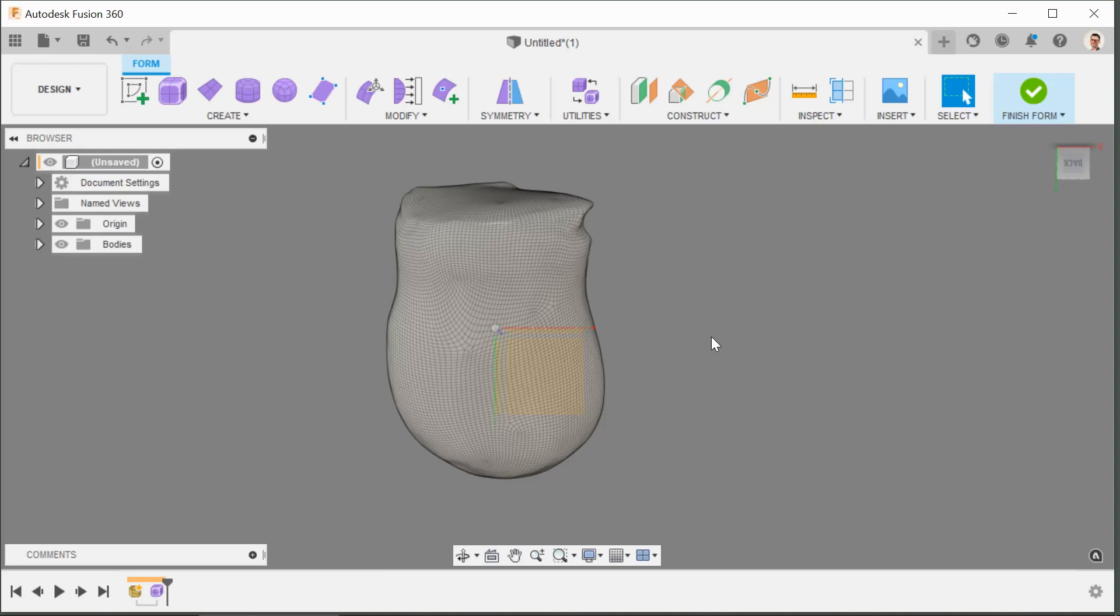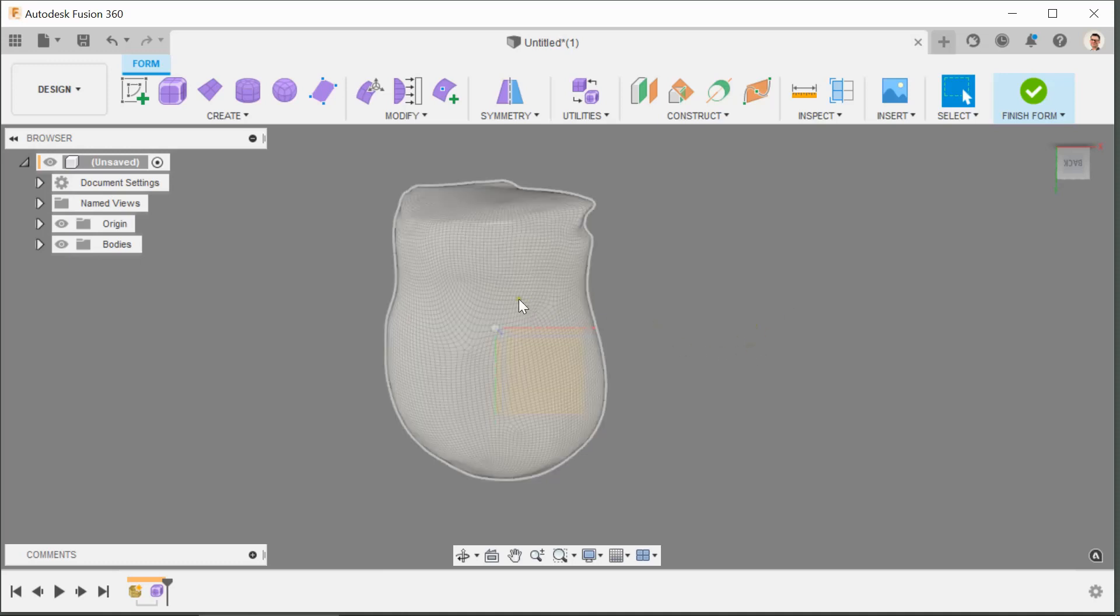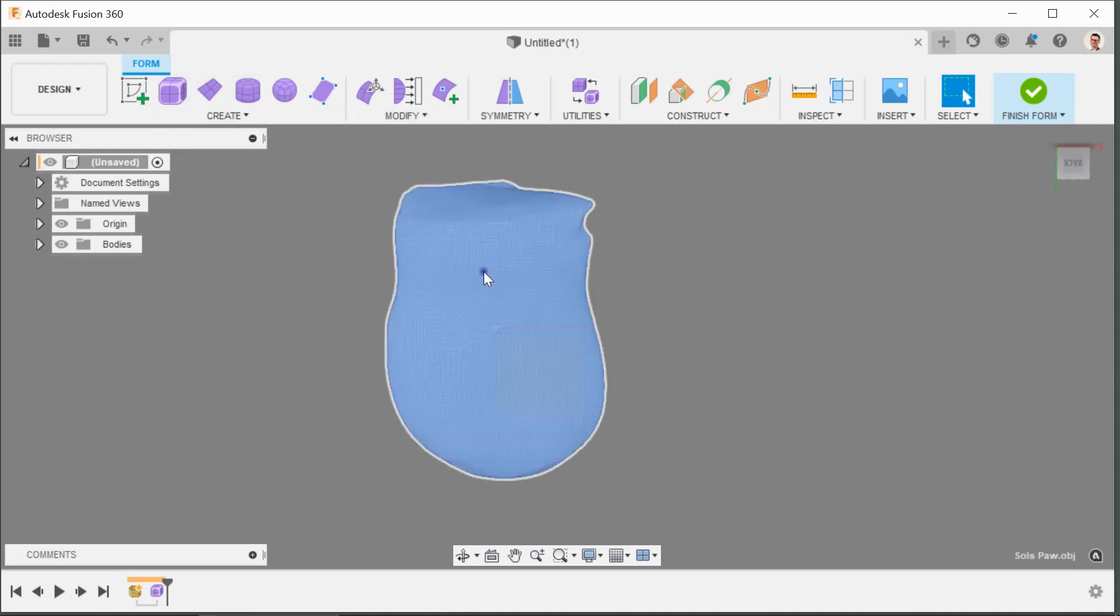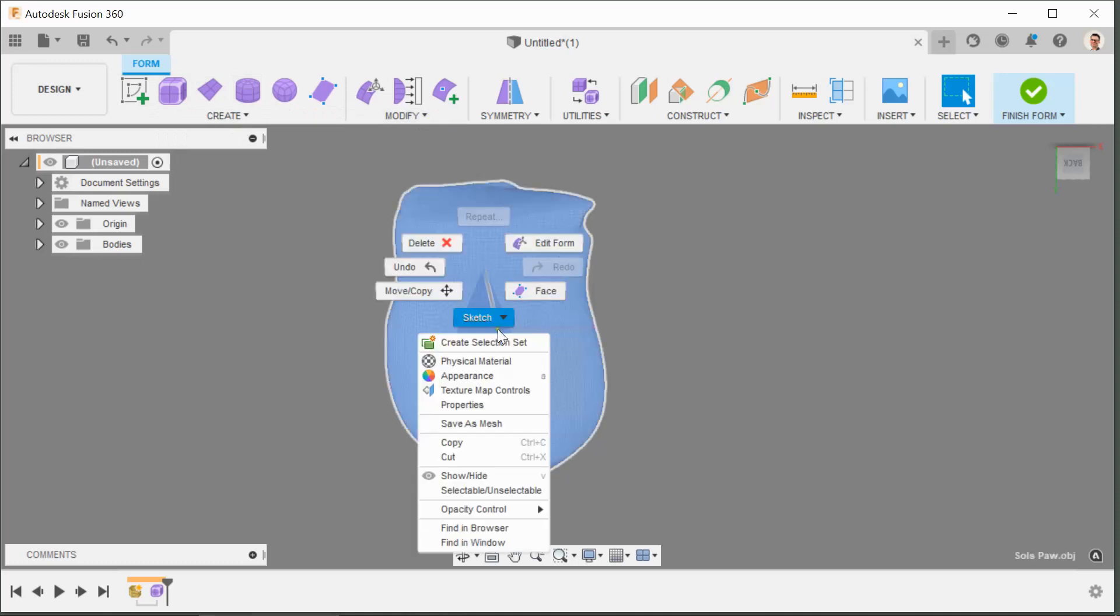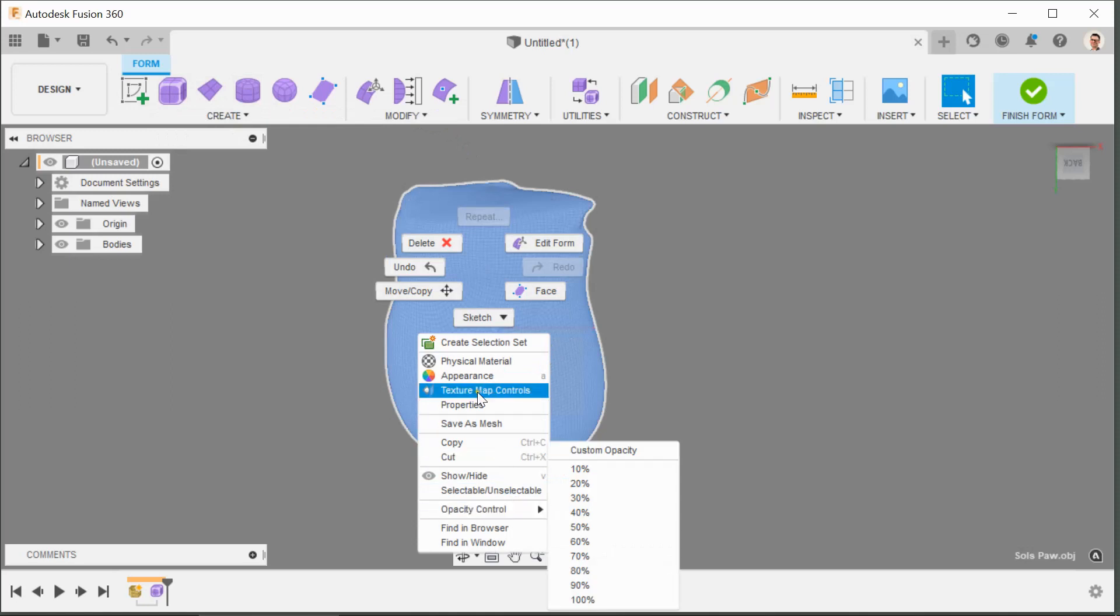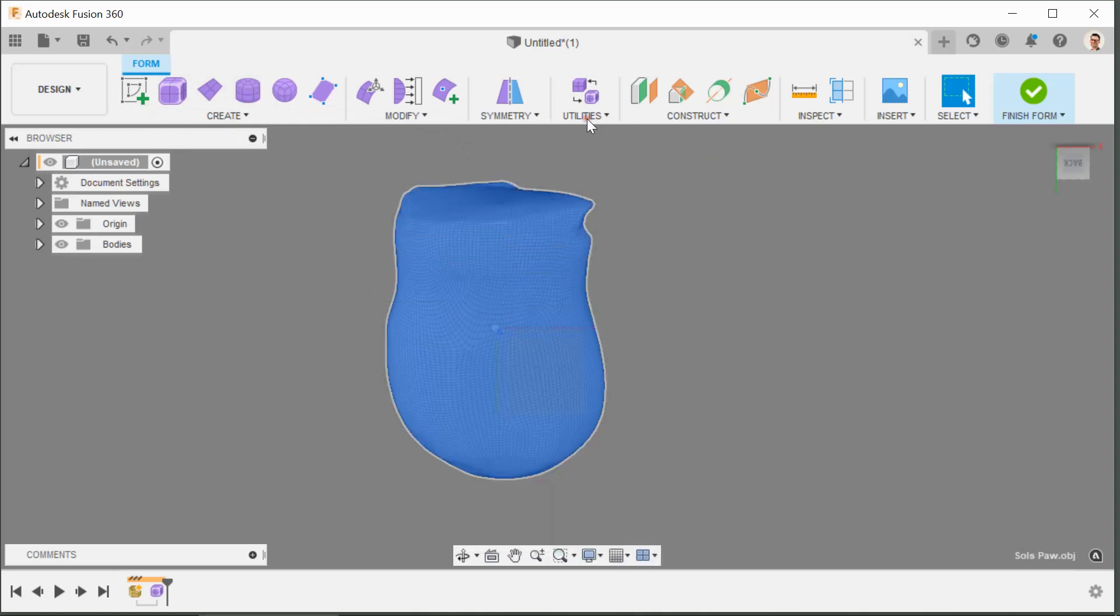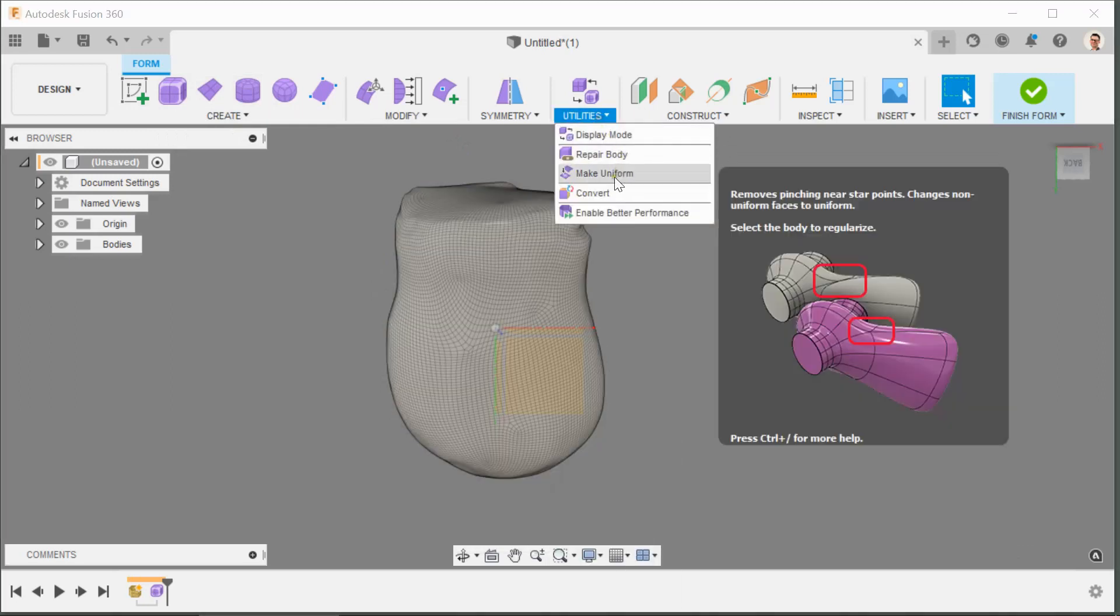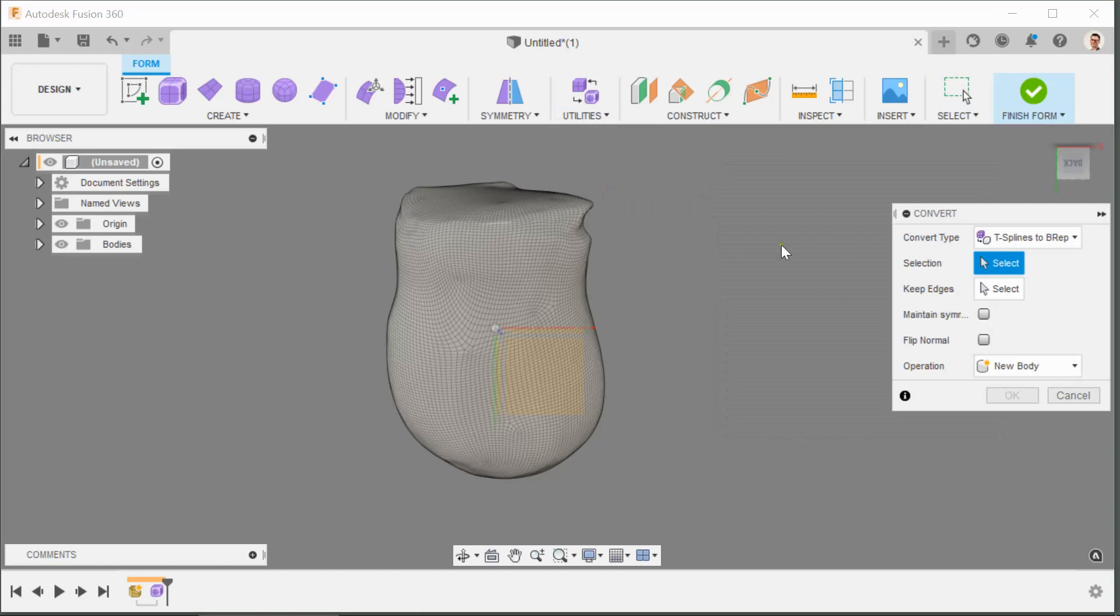Once we're in the convert space you need to right click and convert. But I don't see the option there, nothing. Something's changed in the recent update, I used to get the option here to convert but now I'll have to go to Utilities and Convert the body.